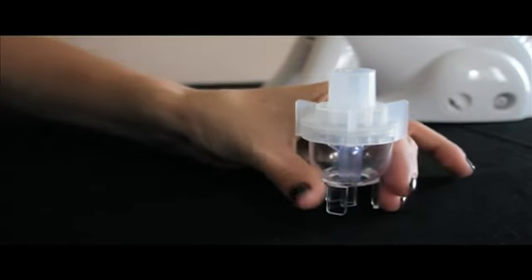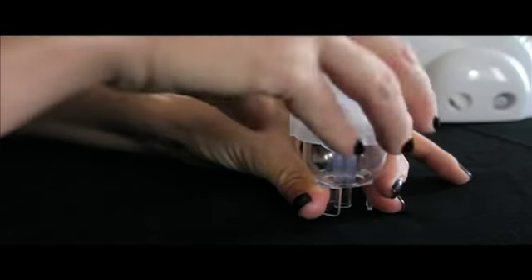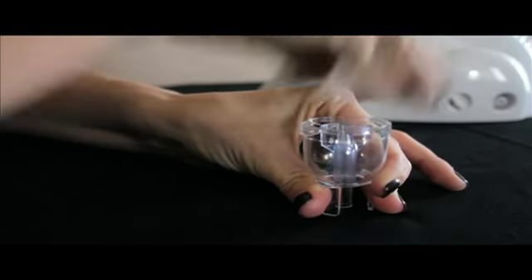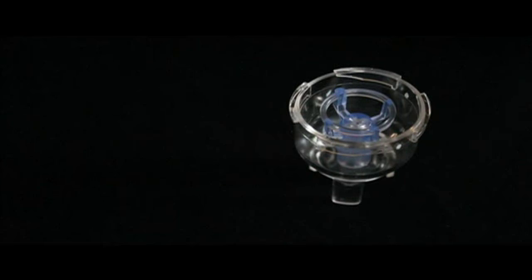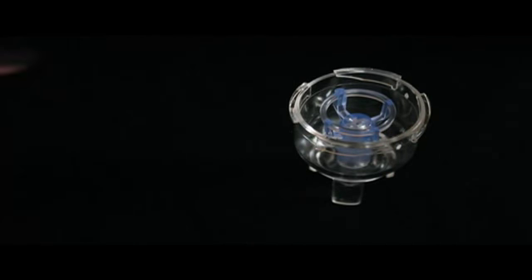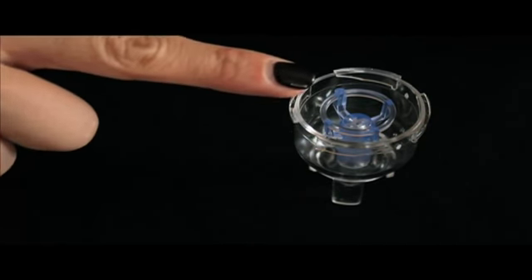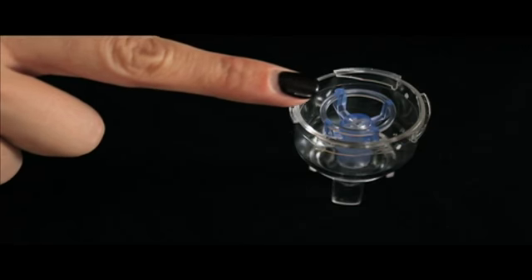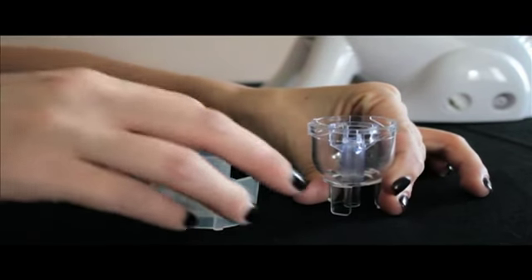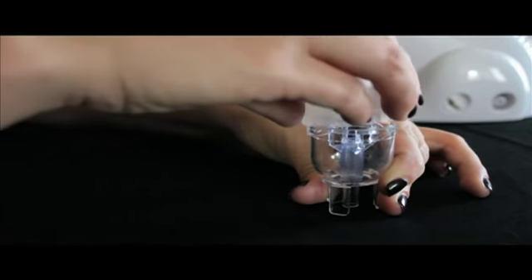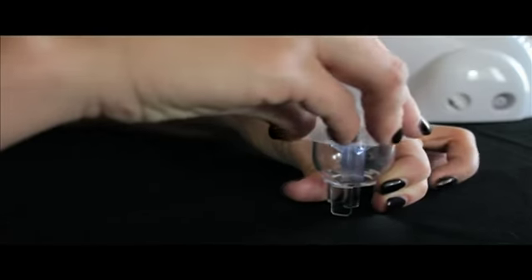Remove the cover of the nebulizer by gently turning and lifting. Check to make sure the Purple Jet is properly installed. Add prescribed medication into the nebulizer. Reassemble the nebulizer by twisting the cover to the lock position.